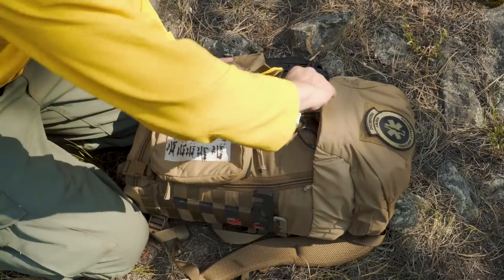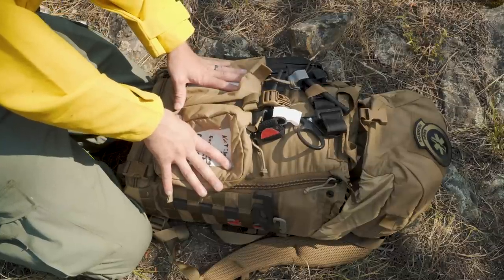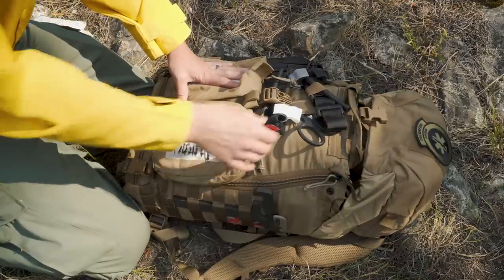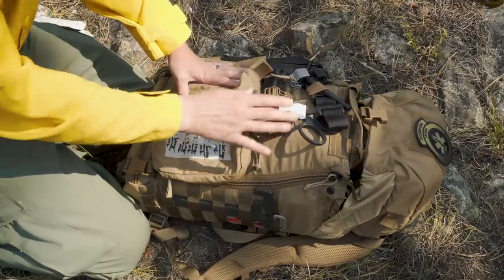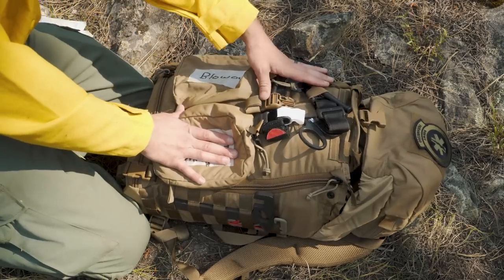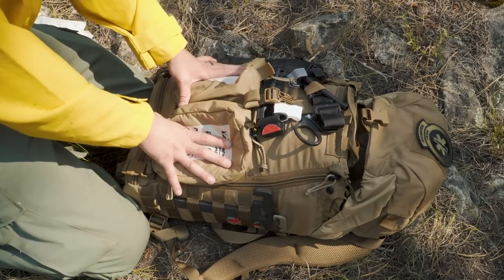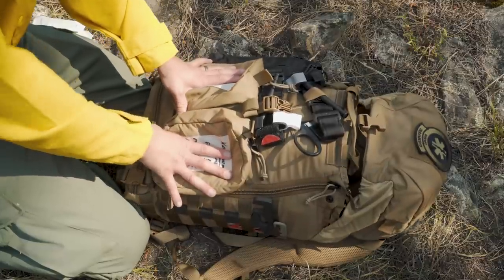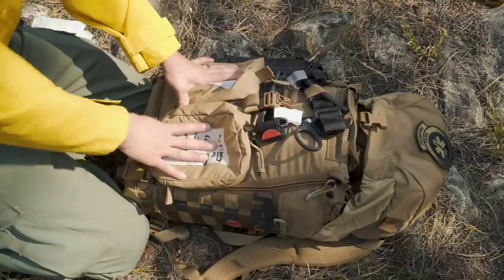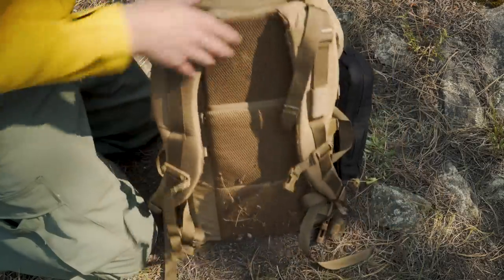On the front you'll notice I didn't actually have the tourniquets on here before. I've decided to leave them on the outside — if it rains I can put them under the flap — but it keeps them more accessible and visible if somebody else has to use the pack, and it frees up a lot of space on the inside. This pack is pretty full to the brim. Two CAT tourniquets there and then I have a pair of trauma shears. Unfortunately I forgot my X-shears at home, but I had to borrow one from base camp just for that rapid patient access and getting to the injury in a hurry.